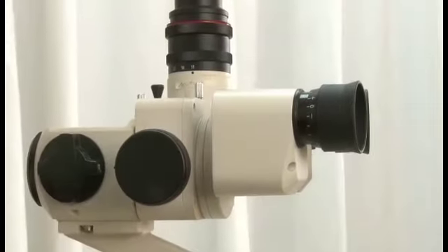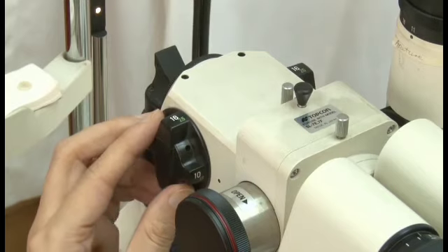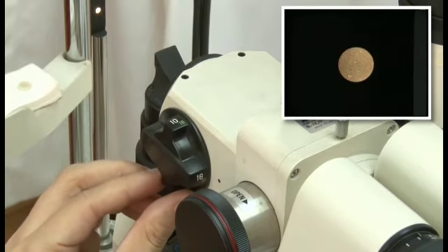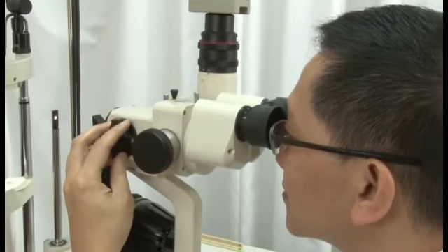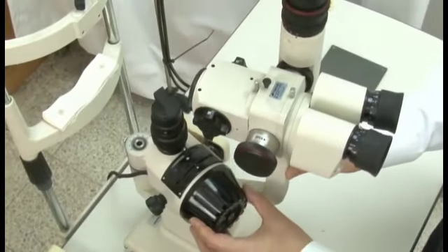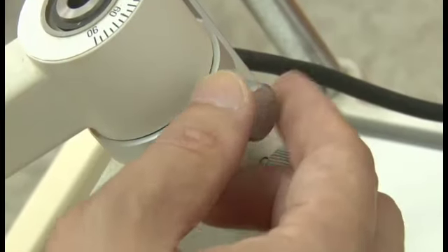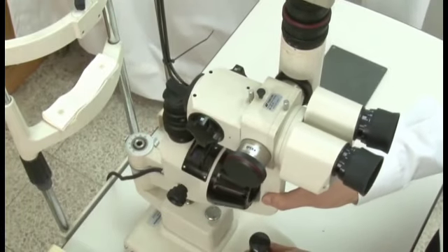The observation system is divided into two parts. First, a microscope consists of eyepieces. Second, a magnification changer. The microscope, together with different magnifications, provides the best view of stereoscopic images. The observation system and illuminating system rotate about a common axis as a single unit or move independently to create different angles between illumination and observation system. That makes different examination techniques possible.